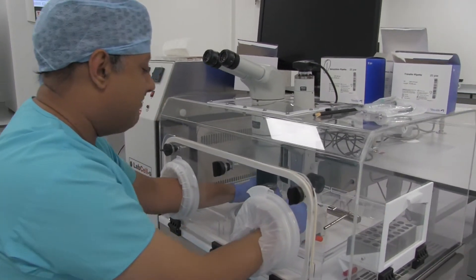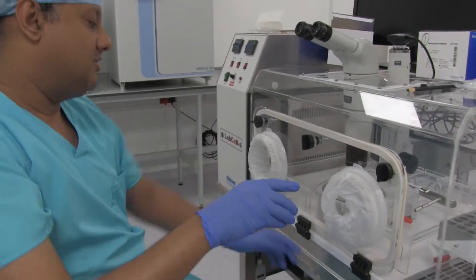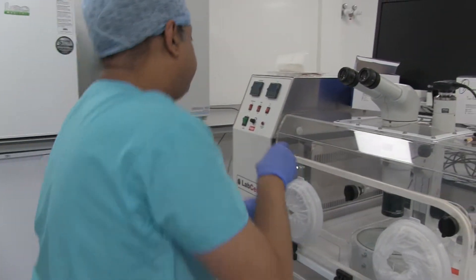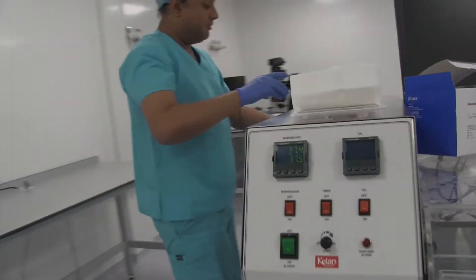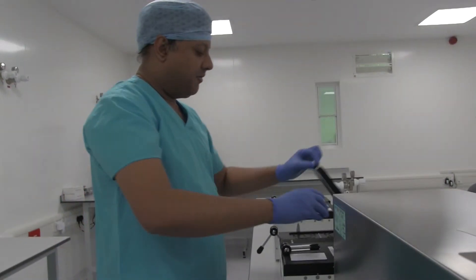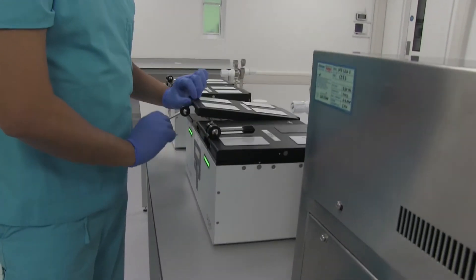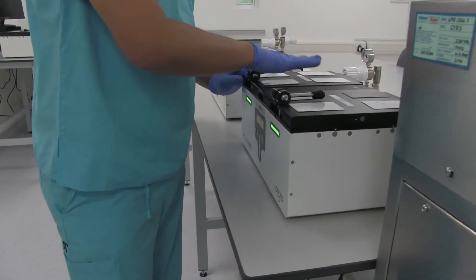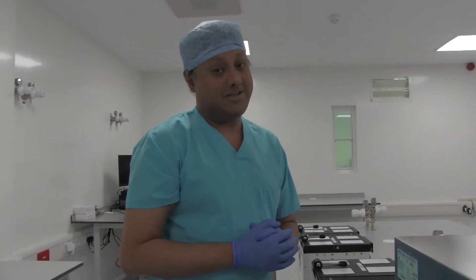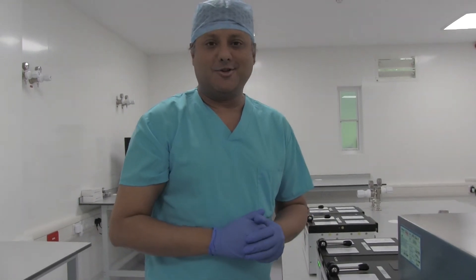After the eggs have been collected, the dish will be taken out of these chambers and put into the incubator, where it rests until insemination. So that is a short video of how and what happens in an egg collection in a laboratory. Thank you so much.